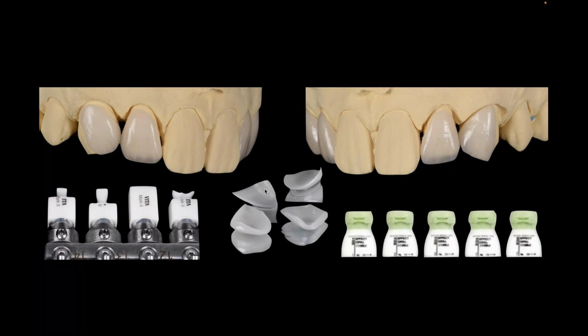I think most of you know that if you're applying any staining materials to feldspathic, they really kind of suck in and grab to the material much better than they do with some lithium silicates and with zirconium materials. And then if I want to layer, I can. I could just layer either VM9 or Lumex material right on it. I don't have to put it in peg putty or build it up in any way. I could just layer right on this little milled veneer, or I could stain and glaze. So it's really a nice process. And in this case, I don't really think I did much layering. Maybe I added a dot of contact or something somewhere, but this was really just a stain and glaze case, which makes it kind of nice.